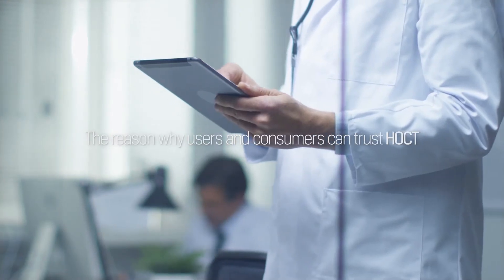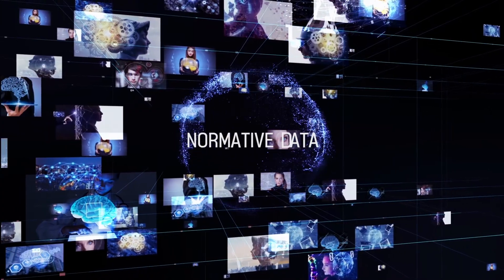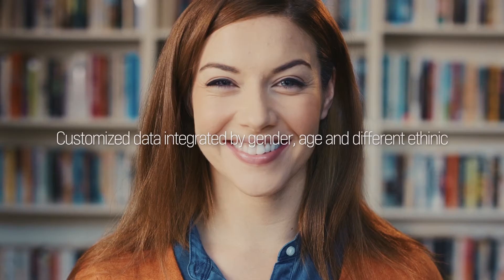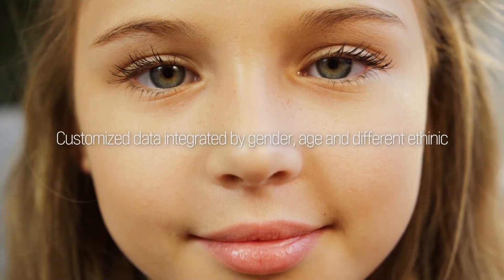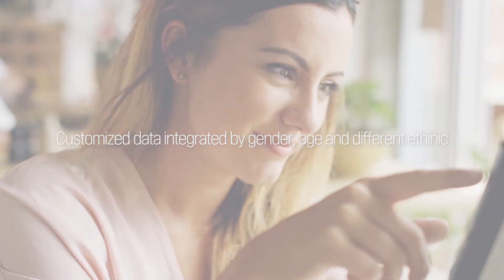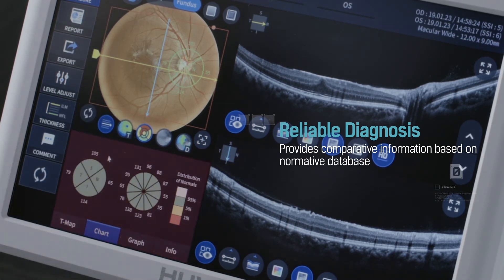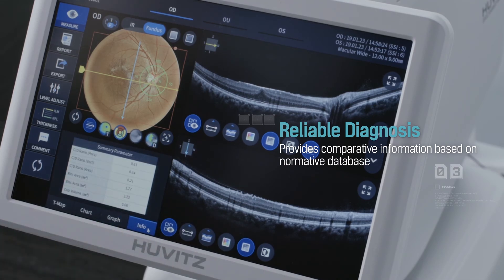The main reason why customers can trust H-OCT is data analysis by our own normative data. The normative data is based on various ethnicities and ages. H-OCT is an all-new OCT, supporting users by comparative data, not only for the purpose of examination.